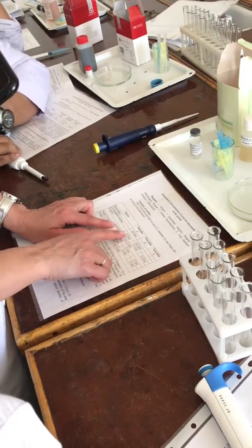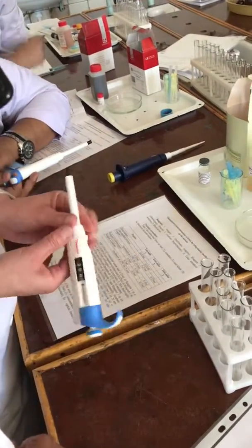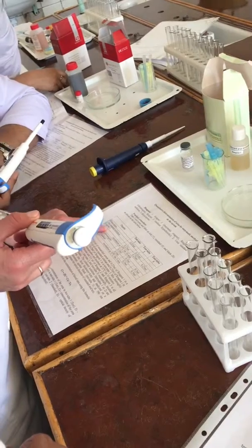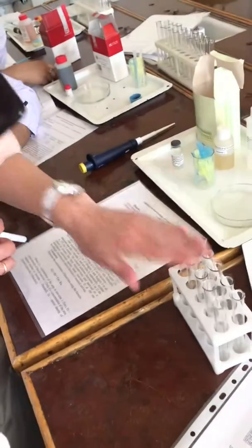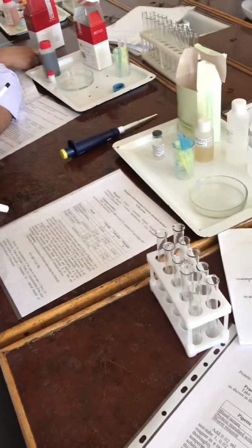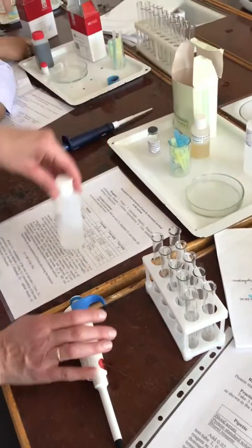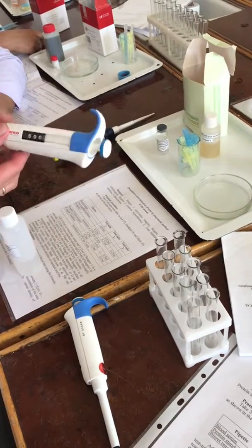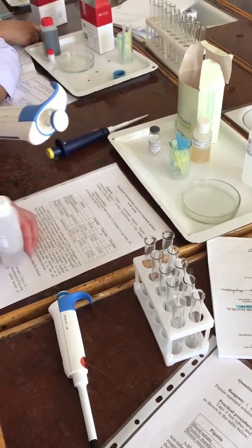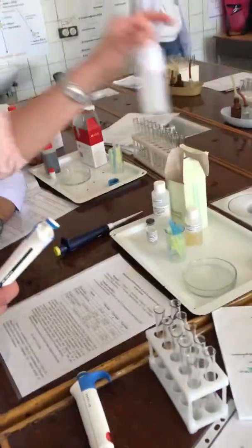It is 0.25. Reagent number one, reagent one, added. Then, without incubation, you add reagent number two — it is 0.5. Add reagent number two in each test tube, and reagent number three in each test tube.